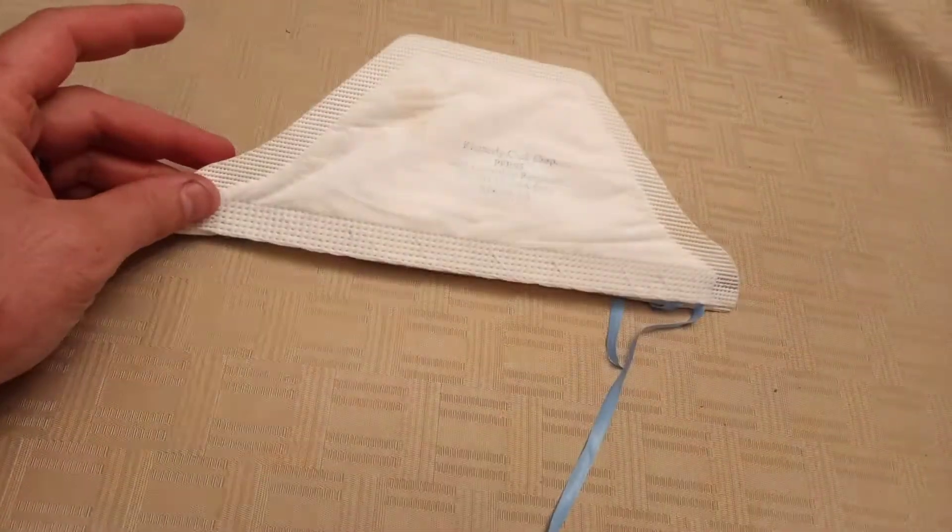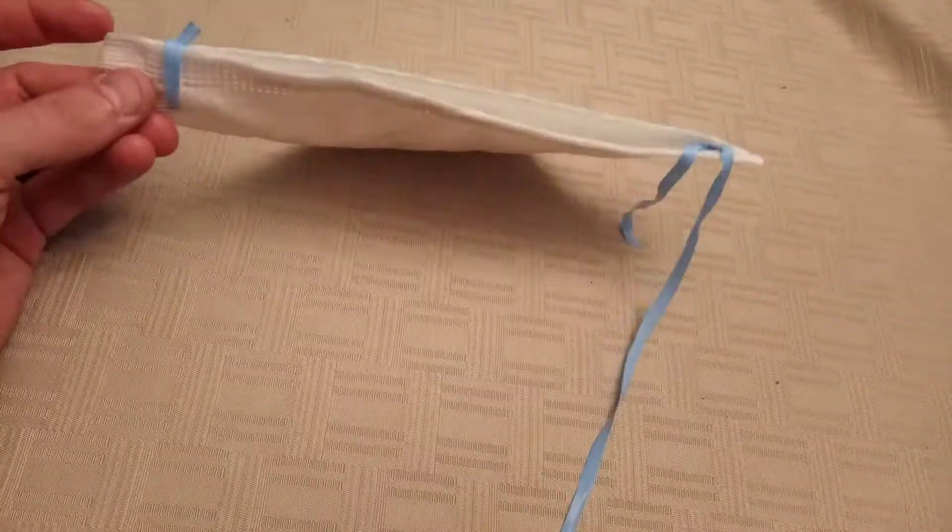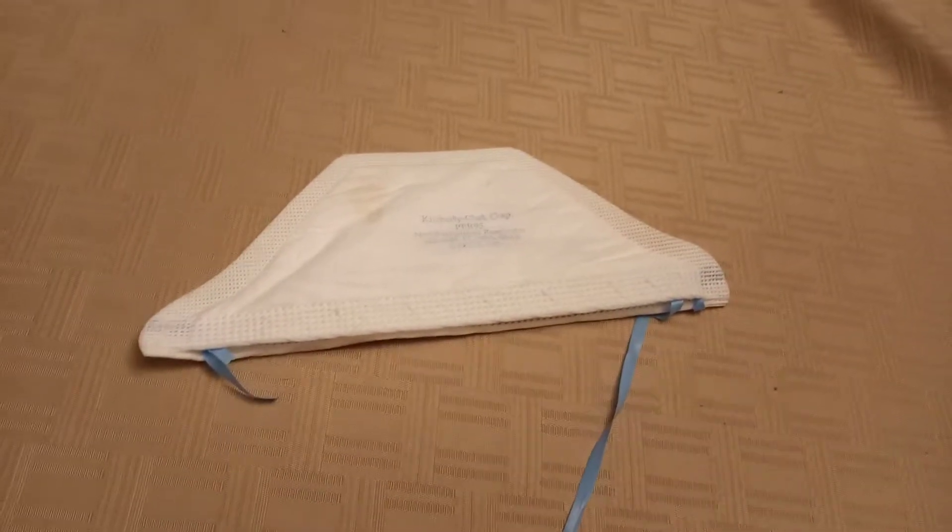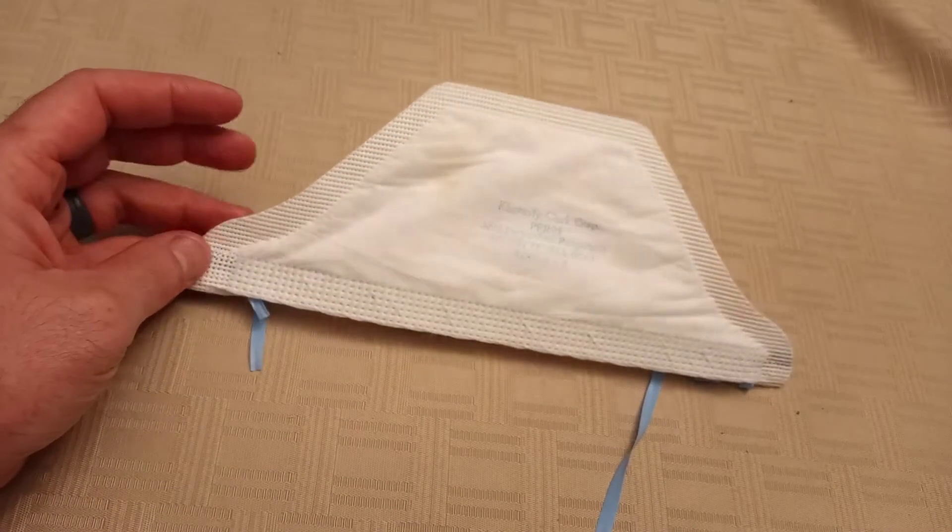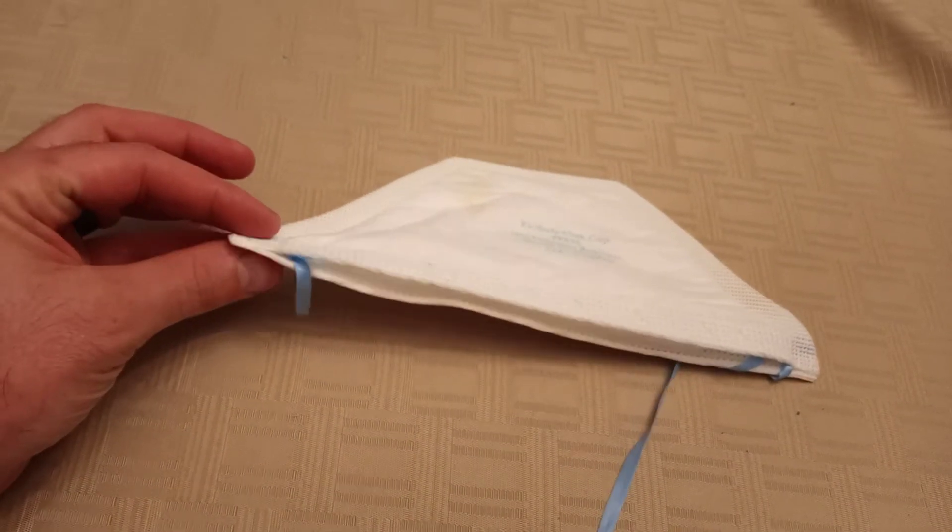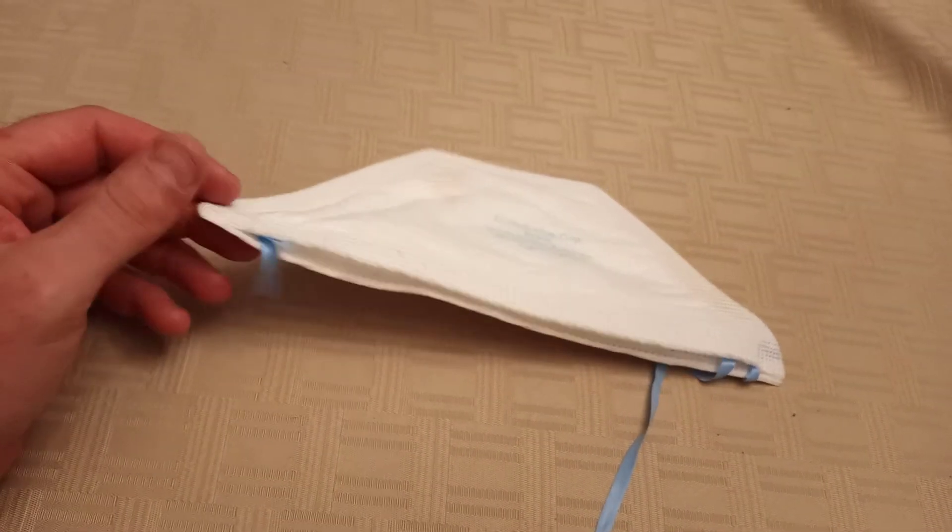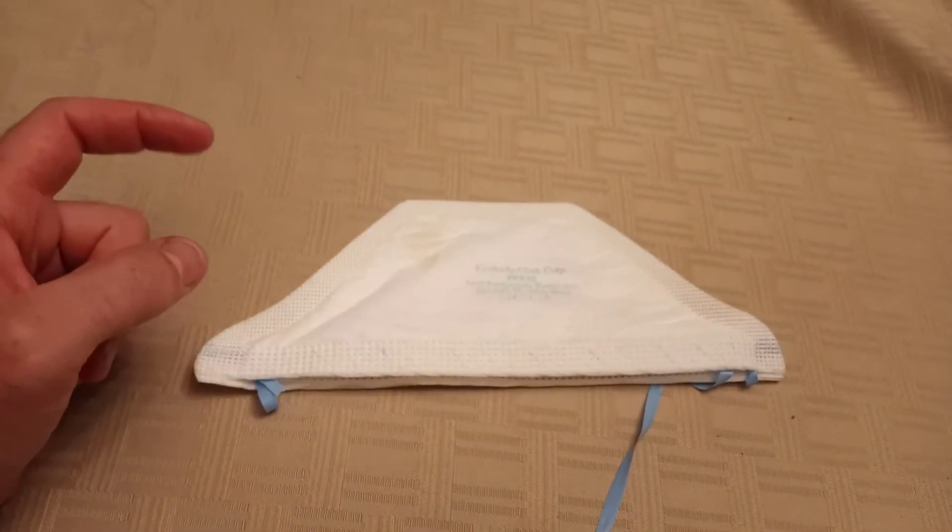Hate to throw away an $8, $10 mask nowadays. So, hunted around videos online with people fixing them with rubber bands and staples and some people sewing them. That's a bunch of work. Really didn't want to mess with it.